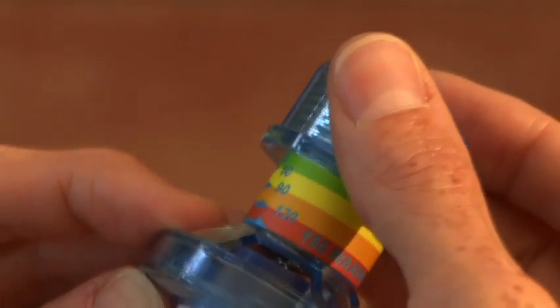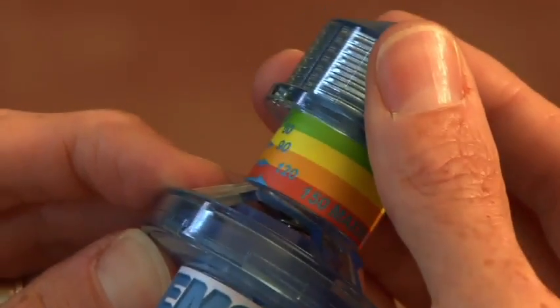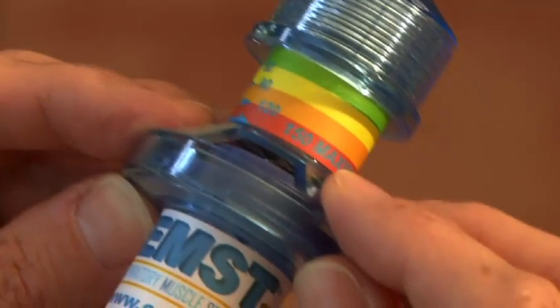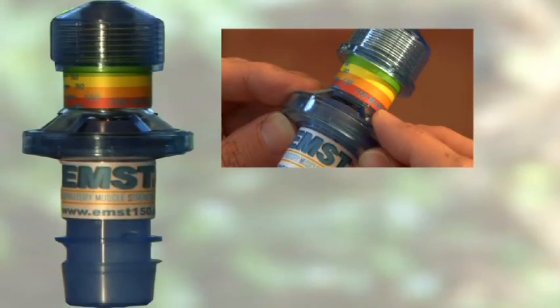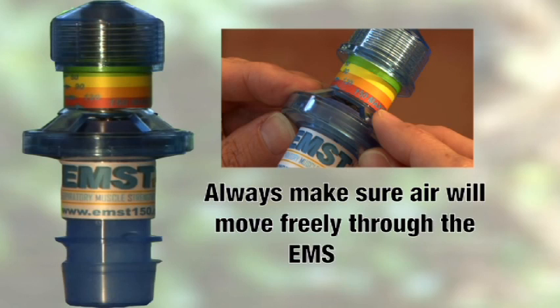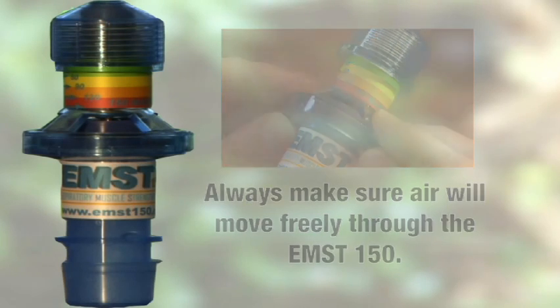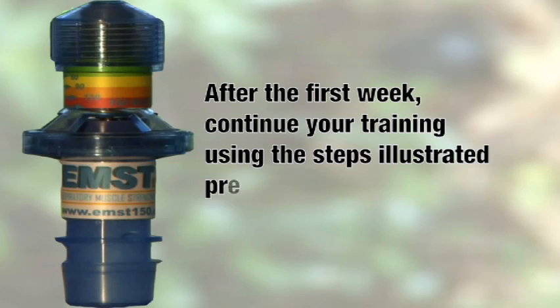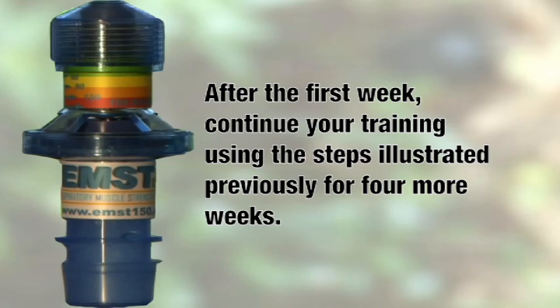At the end of training week 1, you will move the knob on the device 1 quarter turn clockwise and begin training for week 2. If you feel you can turn the knob to a higher level, then do so. But remember, air must move freely through the device without extreme effort. On weeks 3, 4, and 5, you will continue training in the same manner.